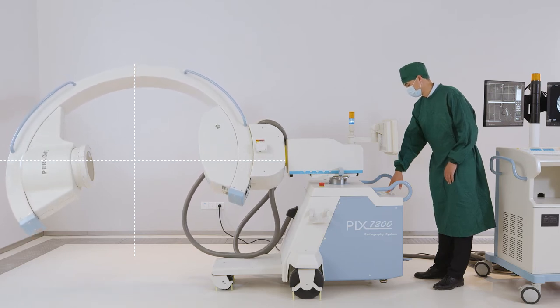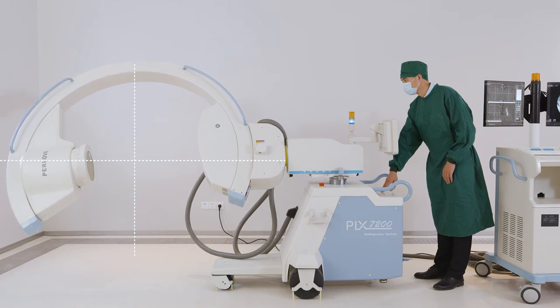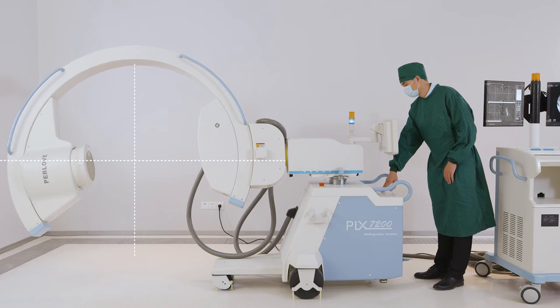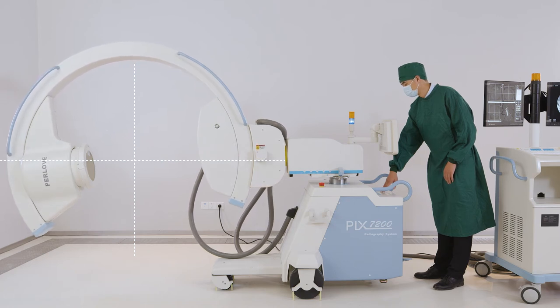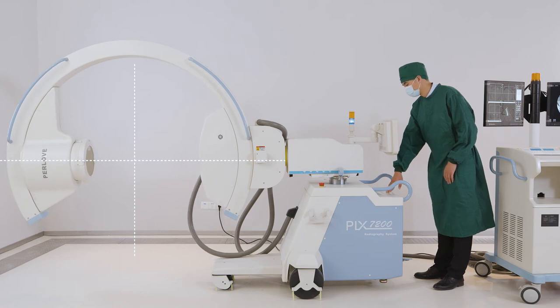A continuous two-dimensional image is obtained. Using the three-dimensional reconstruction function, three-dimensional image is performed by obtaining cross-plane, coronal plane, sagittal plane, and slice images. 3D imaging technology.